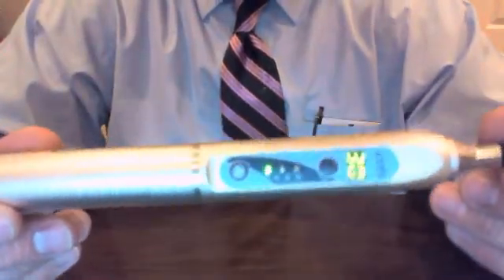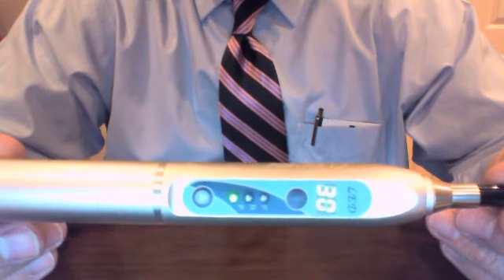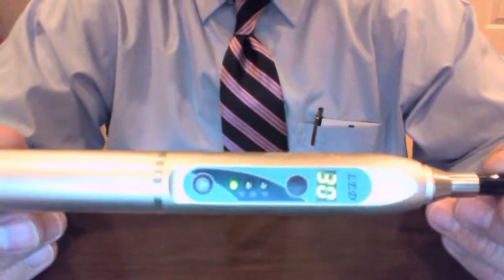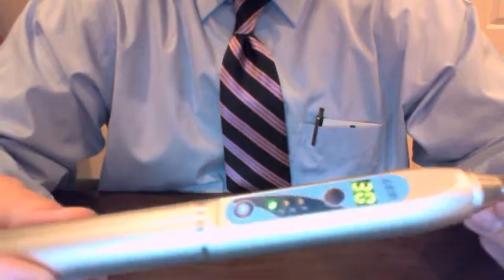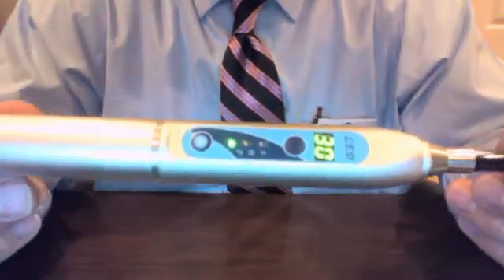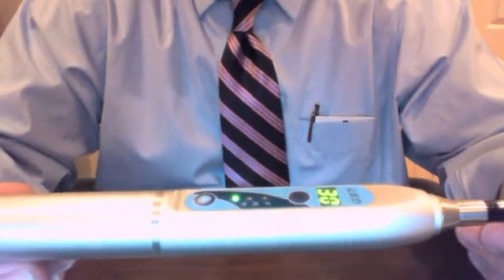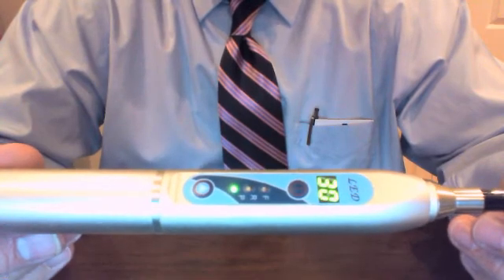Let's review some of the technical specs of the CureFX. It has a lithium-ion battery at 3.7 volts. The CureFX operates at a wavelength range of 430 to 480 nanometers. It has a light intensity of up to 2,000 milliwatts, making it one of the most powerful cordless cure lights on the market. It has multiple modes — on the display you'll see three marks: F for full mode, R for ramp mode, and P for pulse mode. The timer settings: full mode operates in 5, 10, and 20-second intervals with a countdown timer, and all modes beep every five seconds.